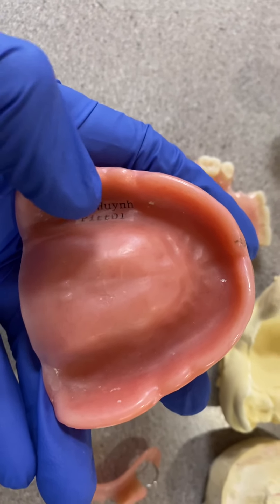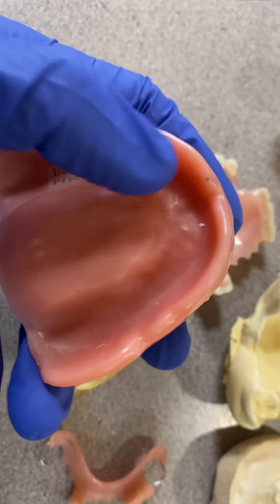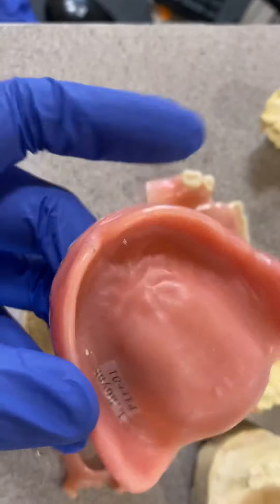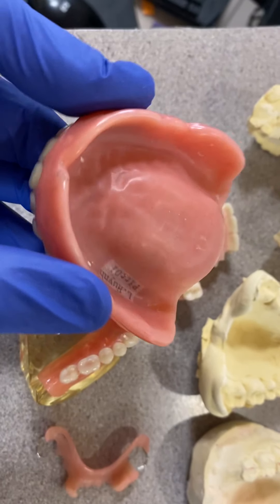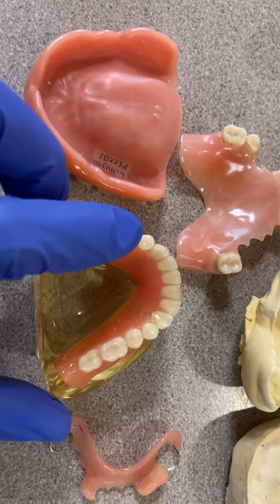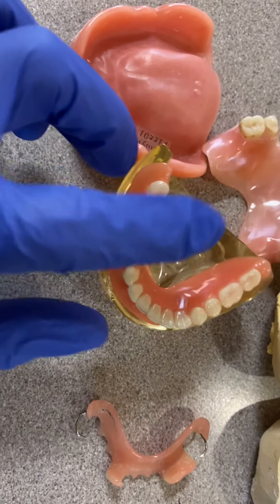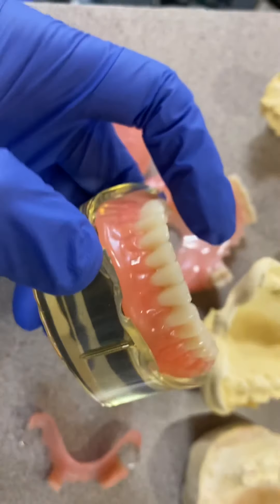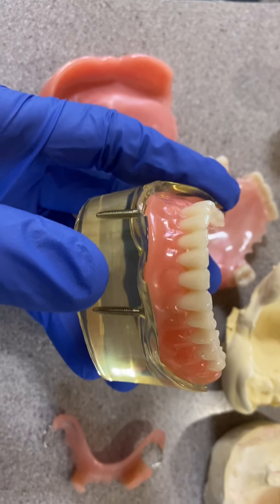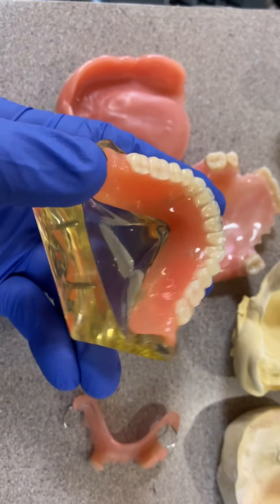For the upper, if you want to do implant over denture, you might need at least four locations — one, two, three, four — to secure the denture because it's so big. For the bottom, you only need two, three, or four, but two is good enough if there is sufficient bone.